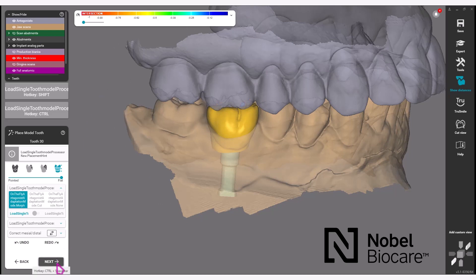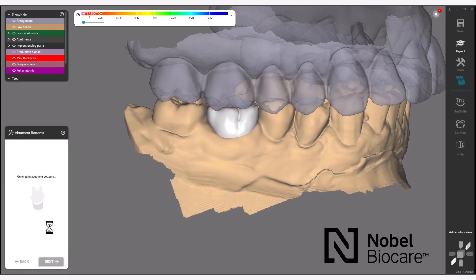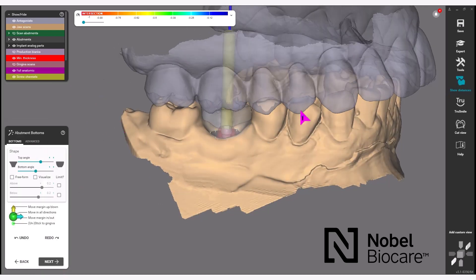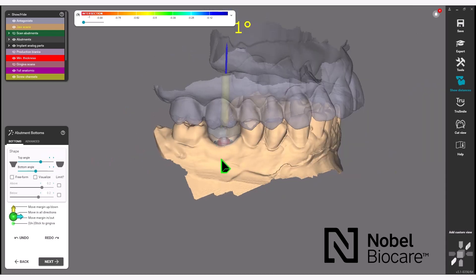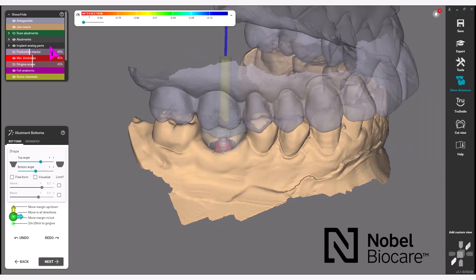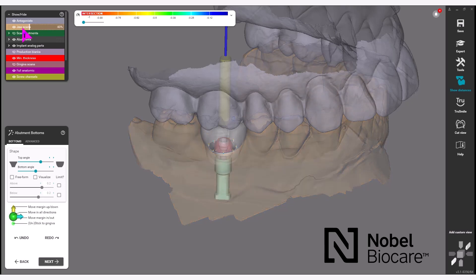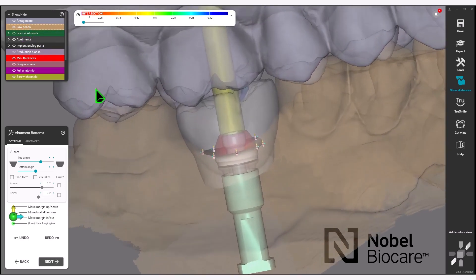Click Next in the wizard to proceed. Under the abutments section of the wizard, you will have a section to design the shape. You can use the Visibility Editor to make things more transparent.